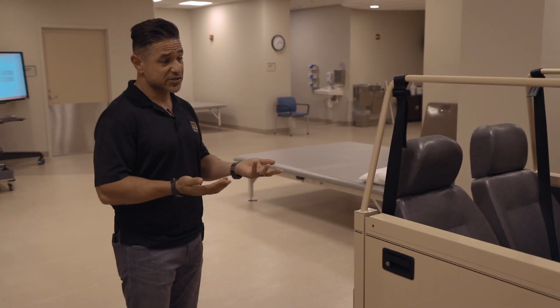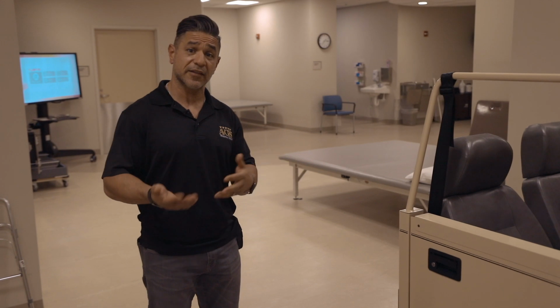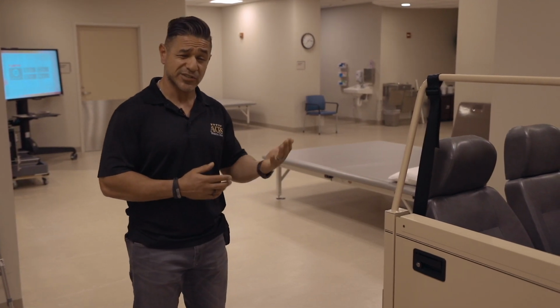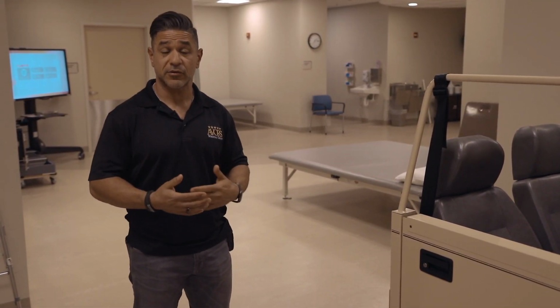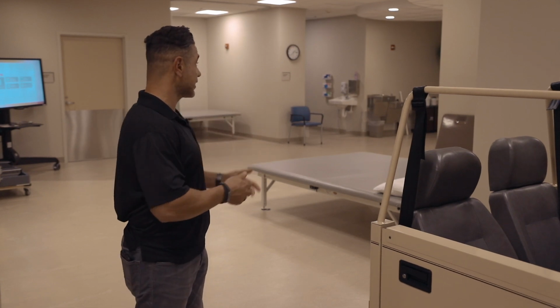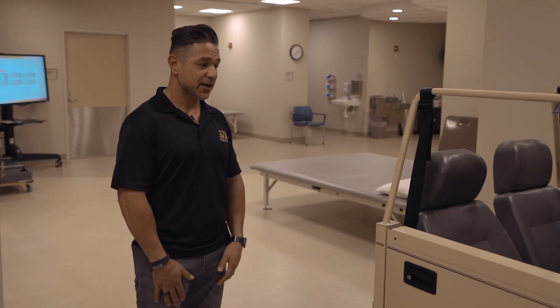The other great thing about this is we often bring in family members who are going to be helping the patient transfer in and out of the car to be participating with this piece of equipment. So once the patient finally goes out to their car to go back to their regular life, it won't seem foreign to them. It'll seem a little bit more natural because we'll have practiced it here in the rehabilitation laboratory, like we like to call it, which is basically our gym. And that's what this device is here that we use.